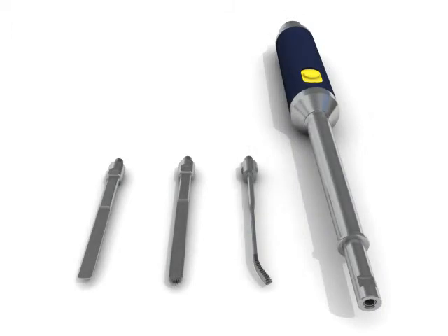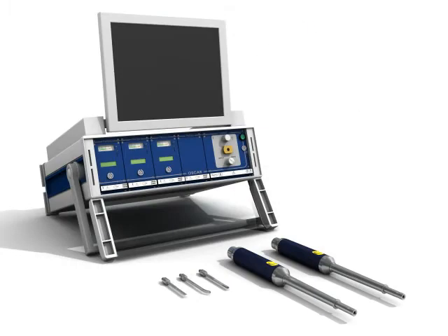The OSCAR bone cutting probes can be a great asset in the conservation of bone. By being a space-creating tool, no wedging or forcing is needed, leading to less stress to the surrounding bone. With OSCAR, no levering motion is needed, nor should be used, as levering can lead to more bone loss than desired.